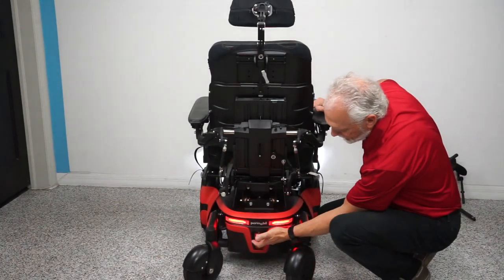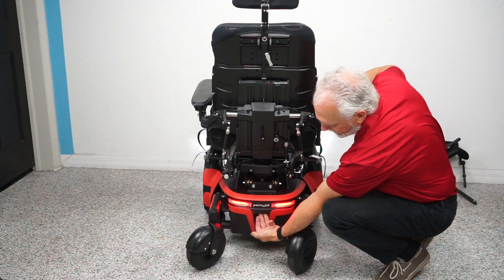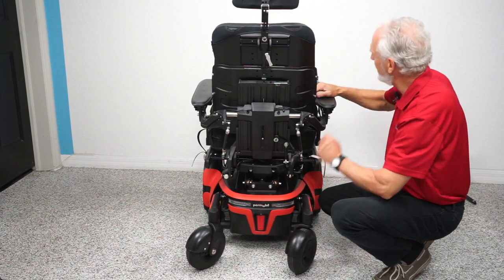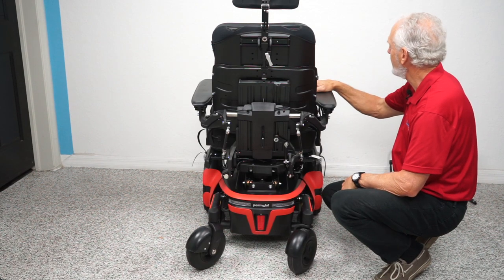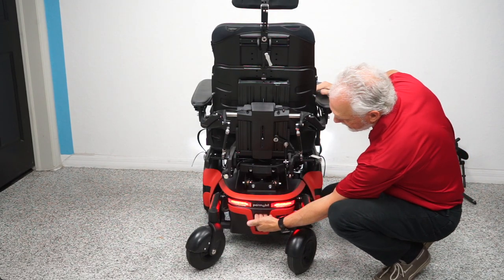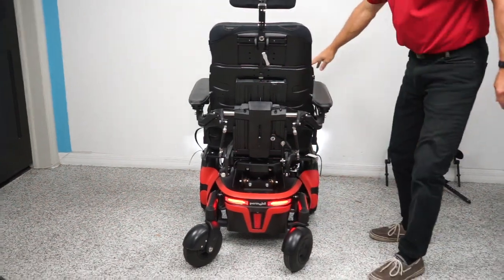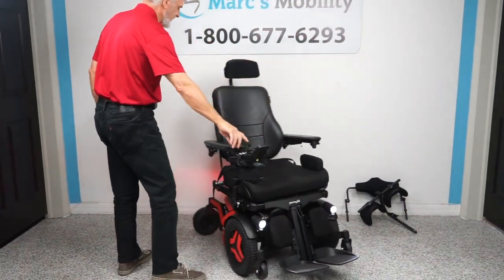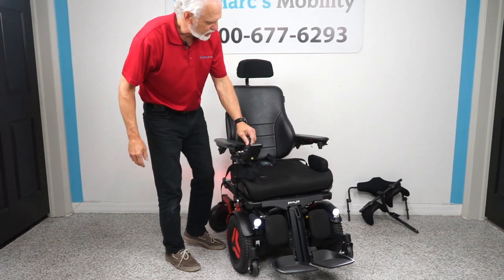When you get this chair, there's a circuit breaker located here. I just turned it back on — when you turn it back on you have to go to the front and turn the power back on. The lights are back on. That's where your breaker is. If you're left-handed, we can switch the joystick to the left side with no problem. The arms do flip up.